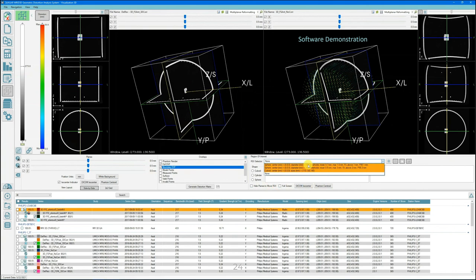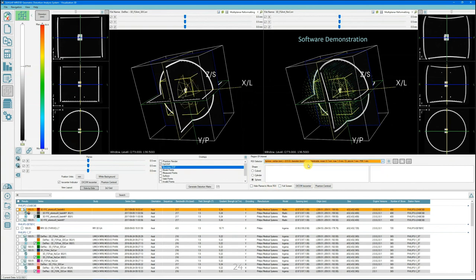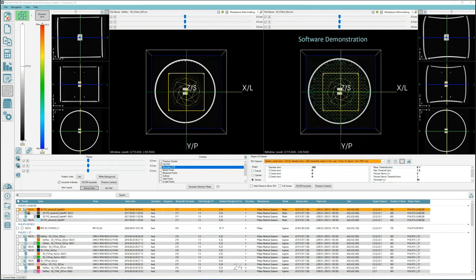A region of interest or ROI selector can be utilized to characterize distortion over predefined or customized standard volumes as required. When invoked, the ROI selector applies to the statistics summary views, as well as in exported data. This concludes the MRID 3D software demonstration, and I will pass over audio to our moderator for the Q&A session. Thank you.